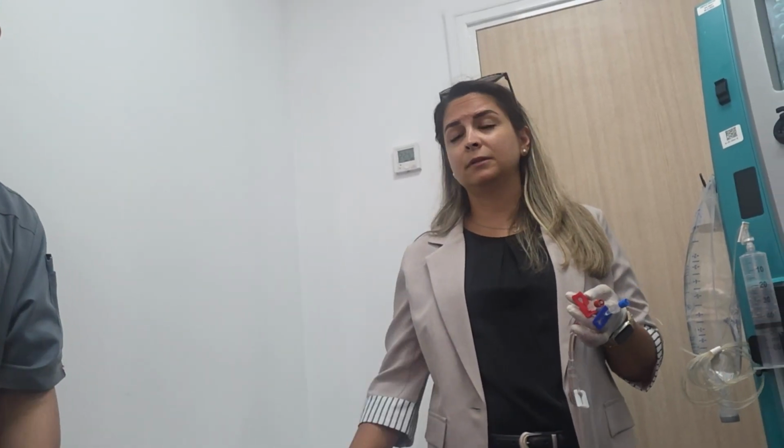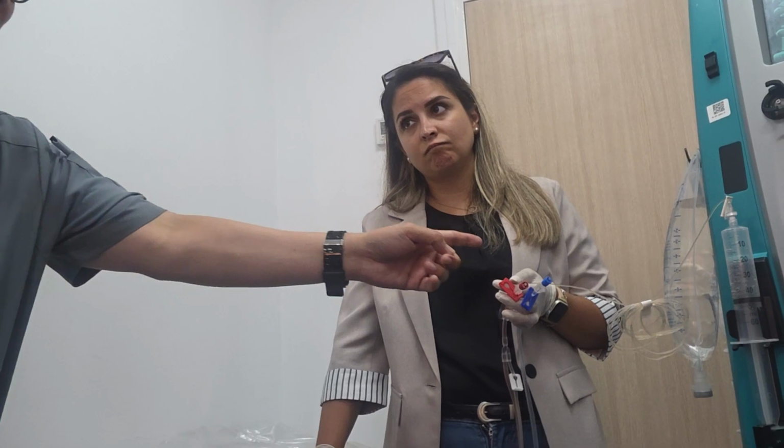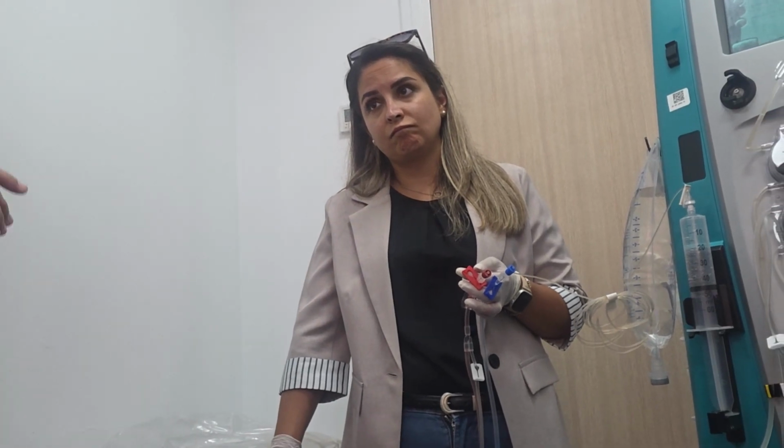Even if you are taking the blood sample from, suppose there is a 3 port, you use one port for the citrate, and you choose another port for the calcium or wherever. Then you take the sample from the other port, still there is a mixing happening. That is why it's not a big deal, need not think about that one. Yeah, return, but still we will check. We will make sure, then you standardize, to take or not to take.